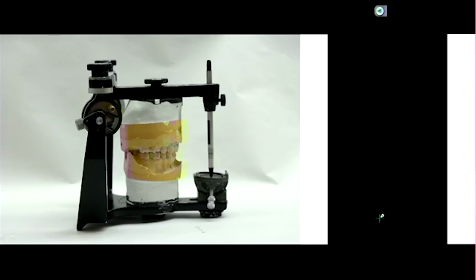As you rotate, it rotates around a condyle, so the length between the condyles has an impact as well. Remember, just like the distance between the teeth and the hinge plays a role in lateral movements, the same principle applies with our intercondylar distance. So some articulators allow you to make a measurement, and then you can adjust the intercondylar distance.